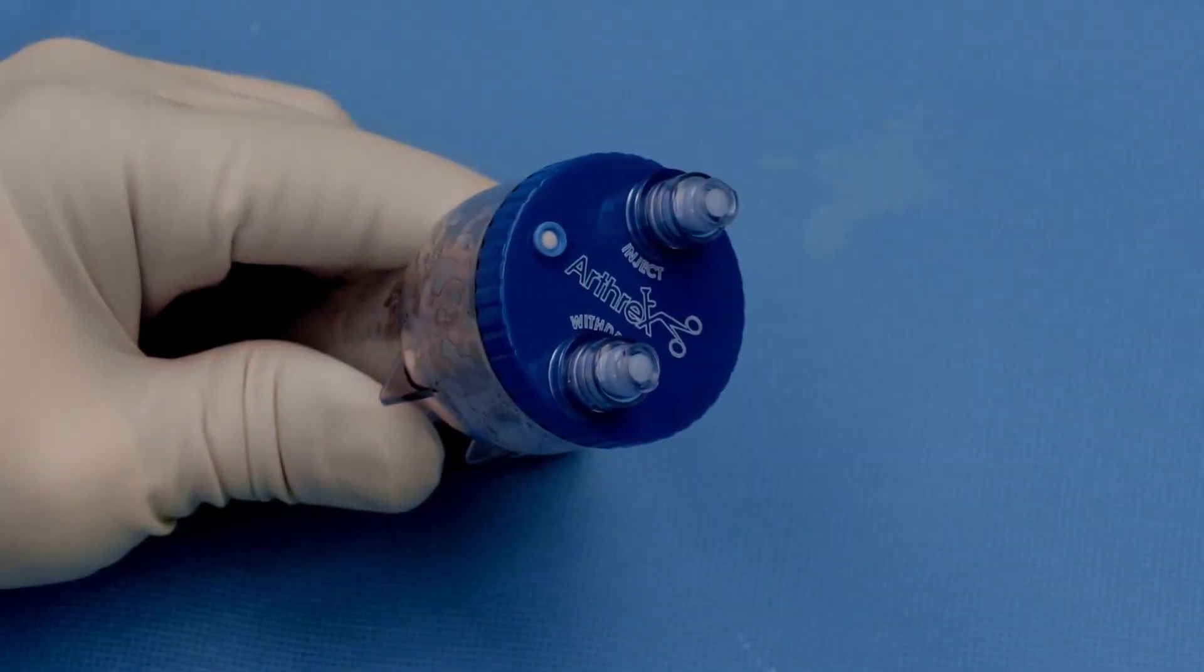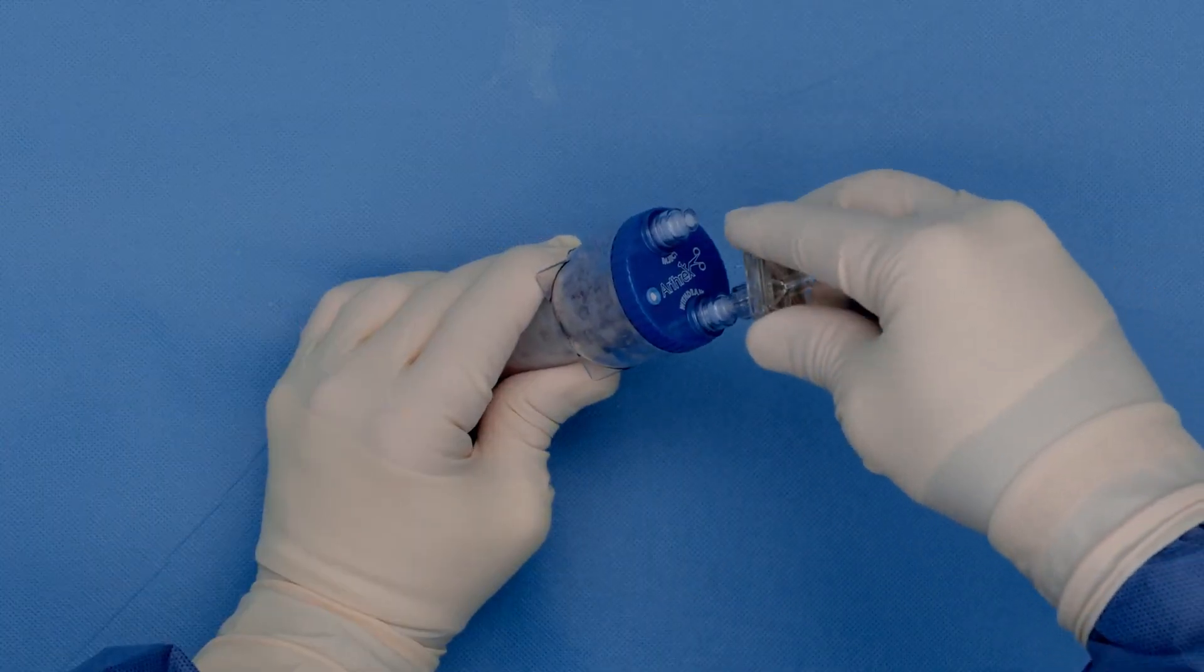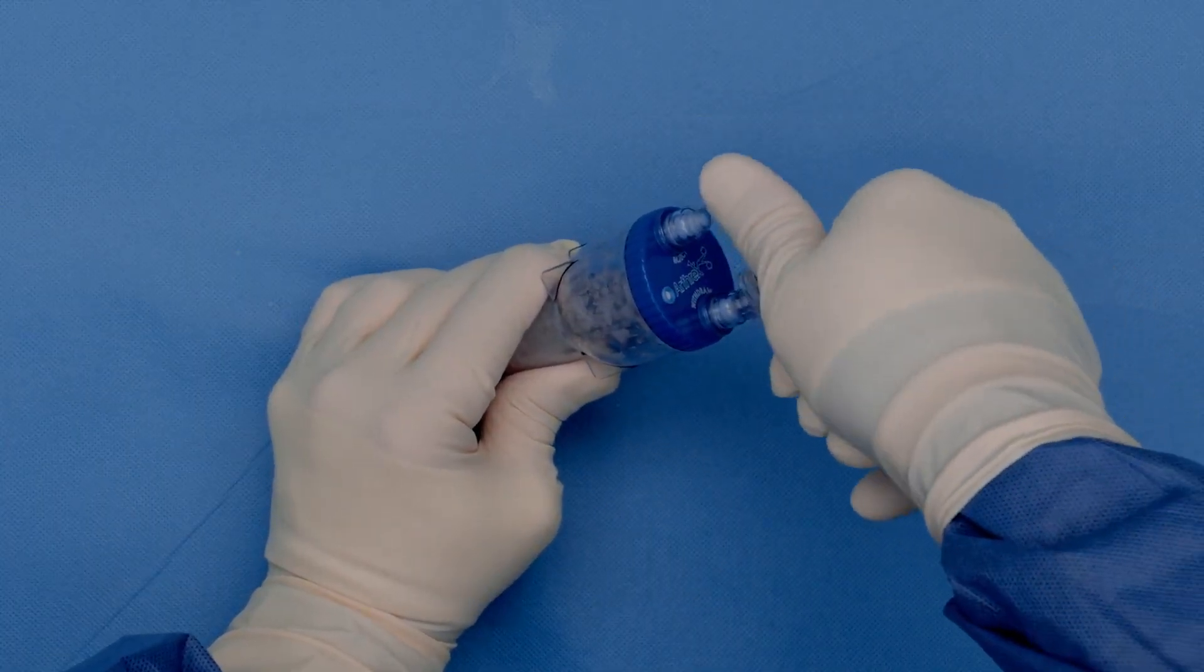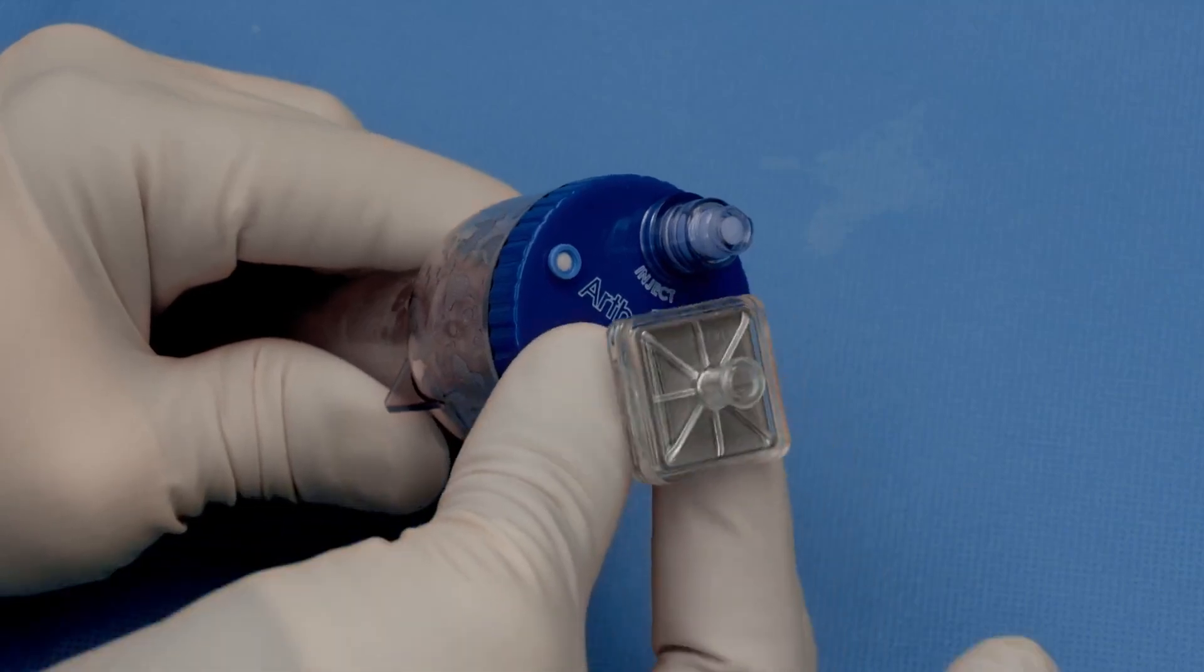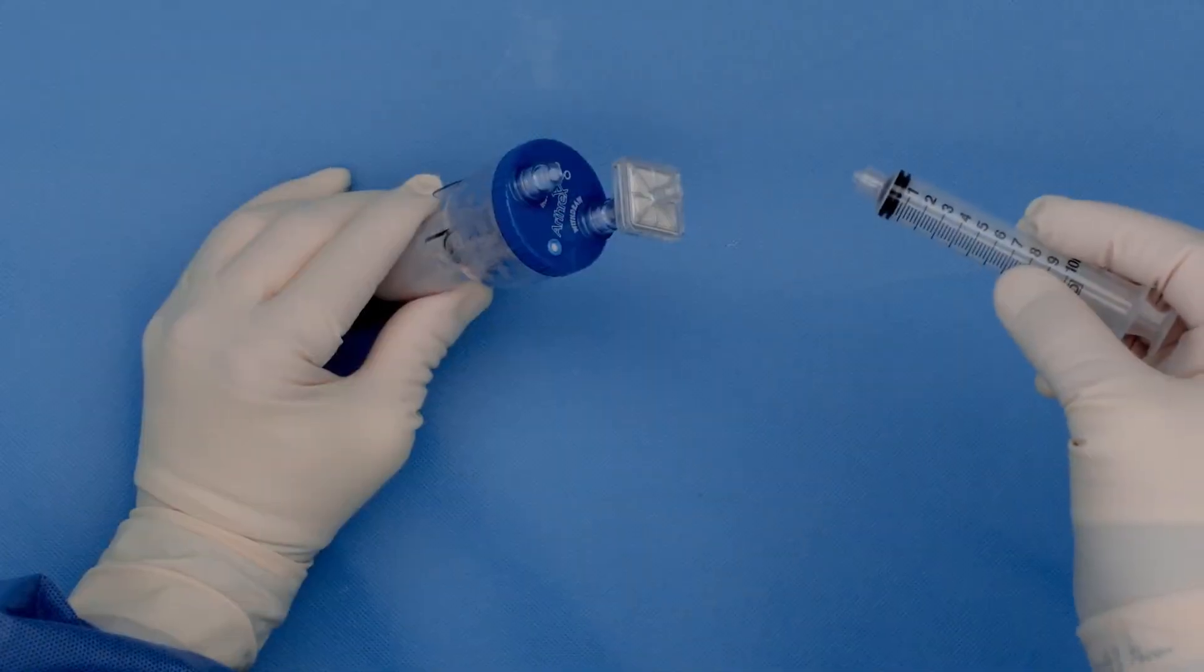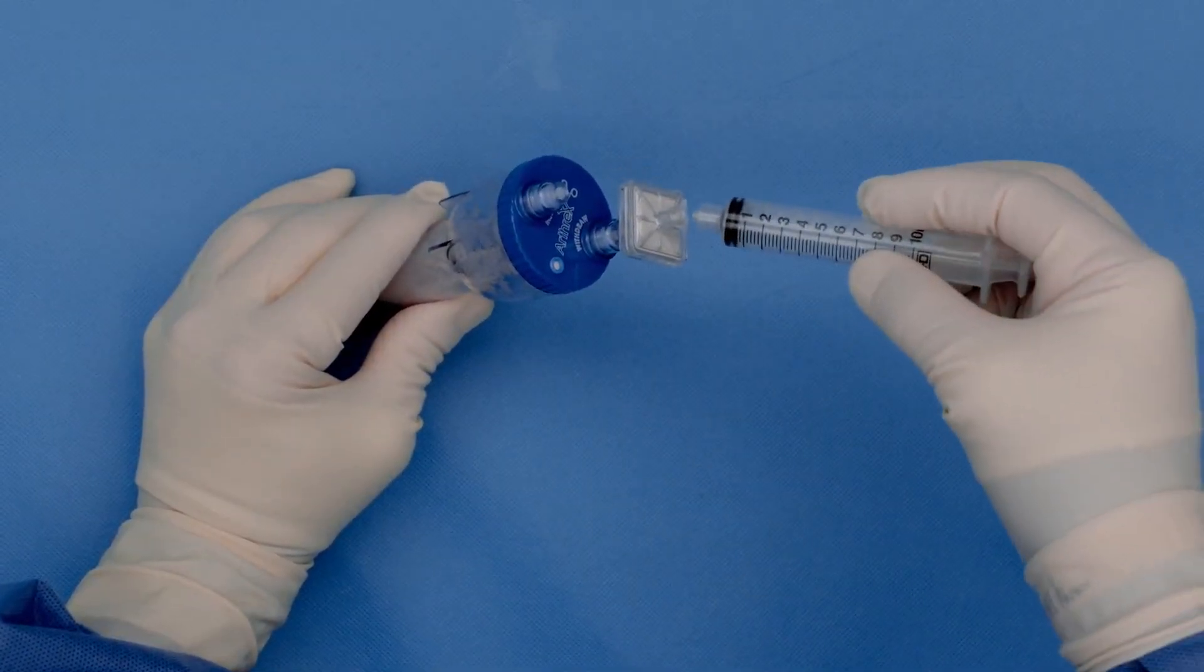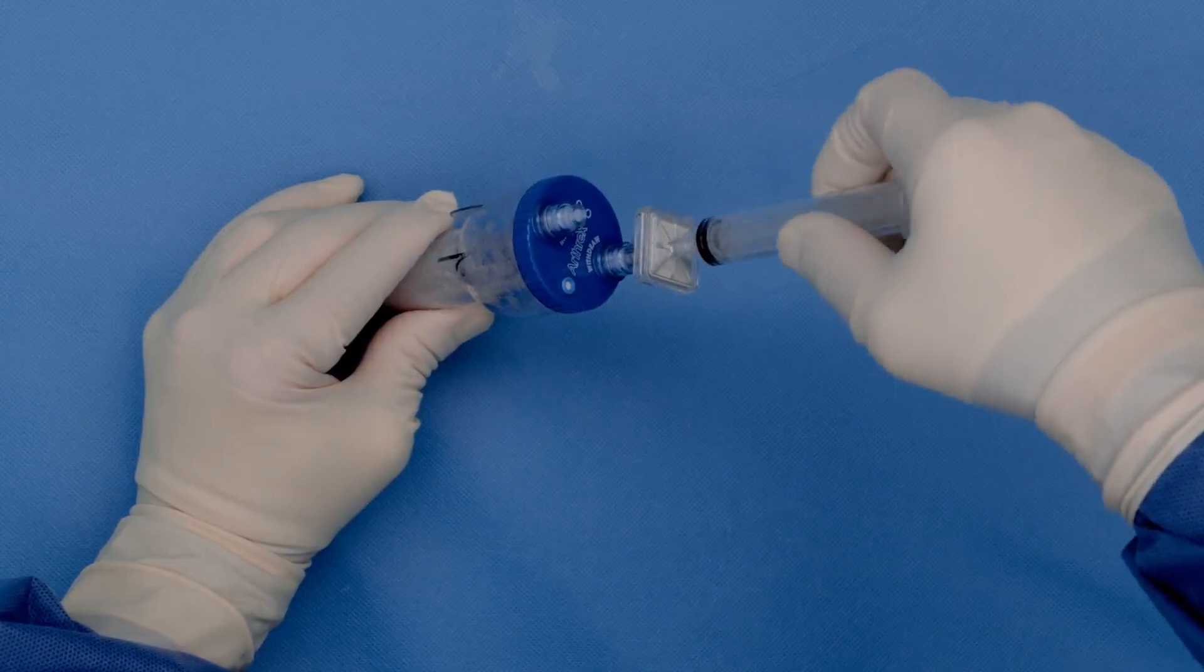In the next step, you apply your filter to the withdrawal site. In the next step, you apply your 10 ml syringe to your filter.